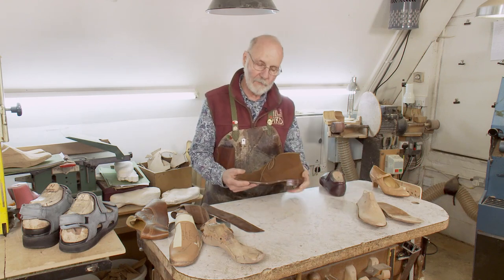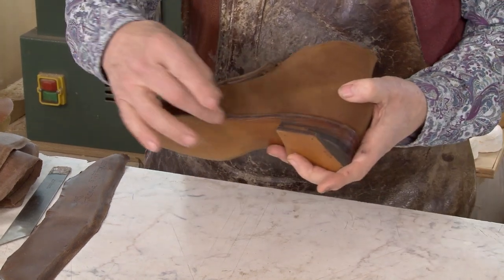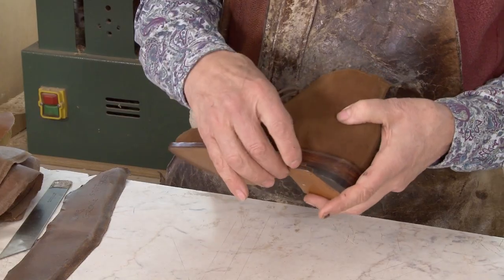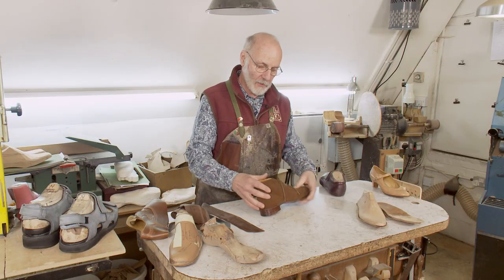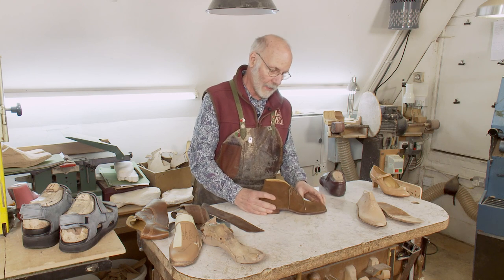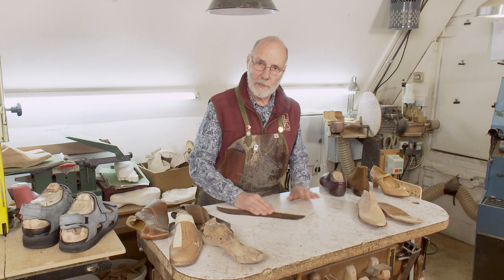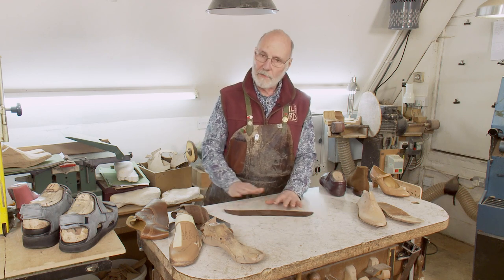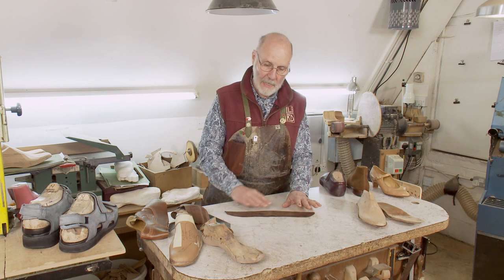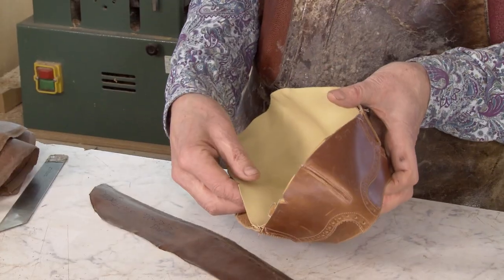On this shoe, you can see from the outside that it's an ankle boot, that it's supporting his ankles. You can see the sole and the type of tread. You can see the heel. All of that is visible as to how we're helping the client. What's not so visible, and what I want to talk about now, are the stiffeners, the insoles, and the toe puffs. These are elements that go between the upper and the lining.